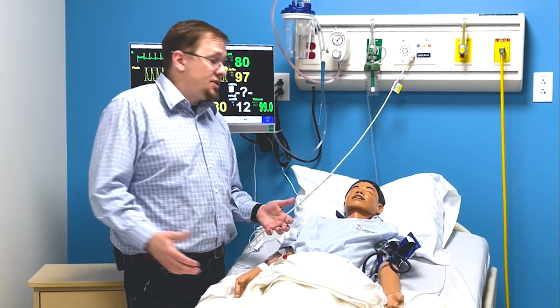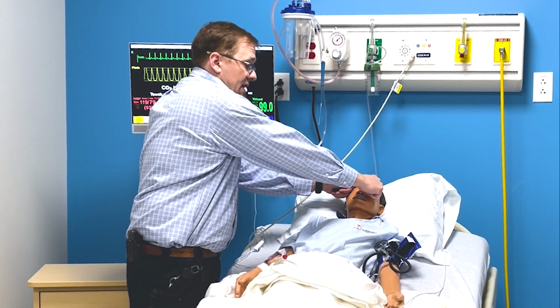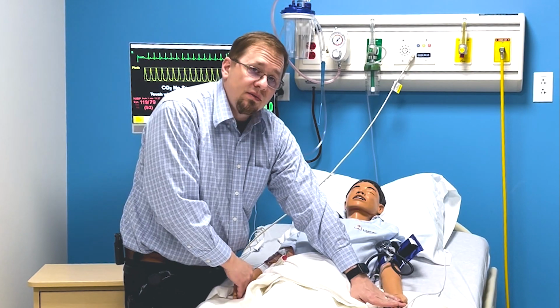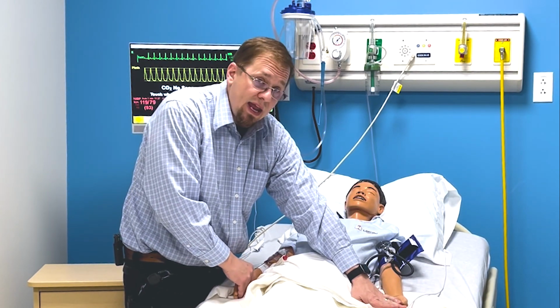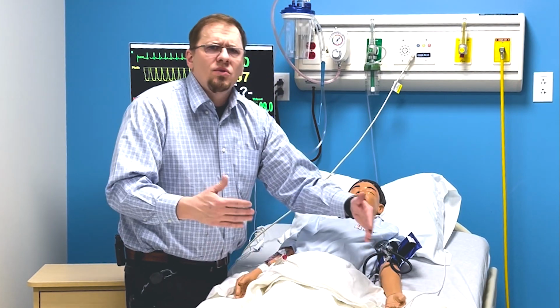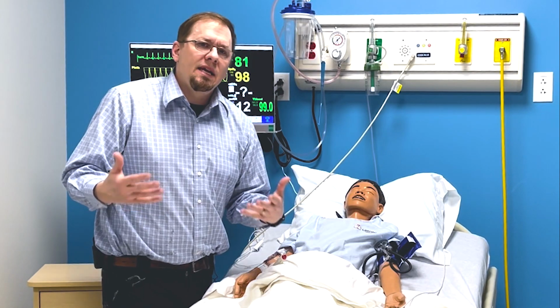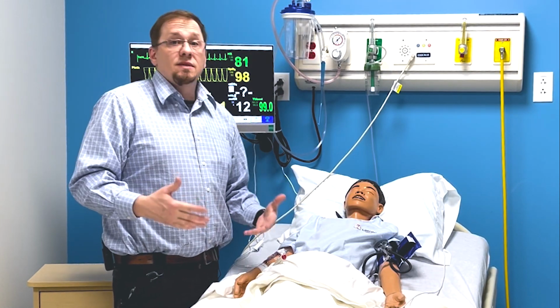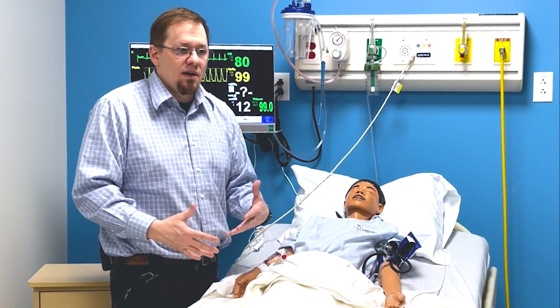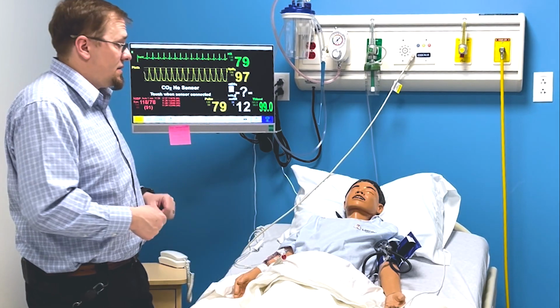Other neurological checks, you're going to do whatever you would do in clinical practice. So if you would do the touch, do you feel, he's going to respond to you. If you want to grab on both hands and say, can you squeeze evenly on both sides? He's going to say, I'm even on both sides, or I'm a little bit weak on the left, or something like that. I know it's a little hokey, but it's things you would need in your clinical practice to differentiate different types of care, so I have to give that to you here, okay?